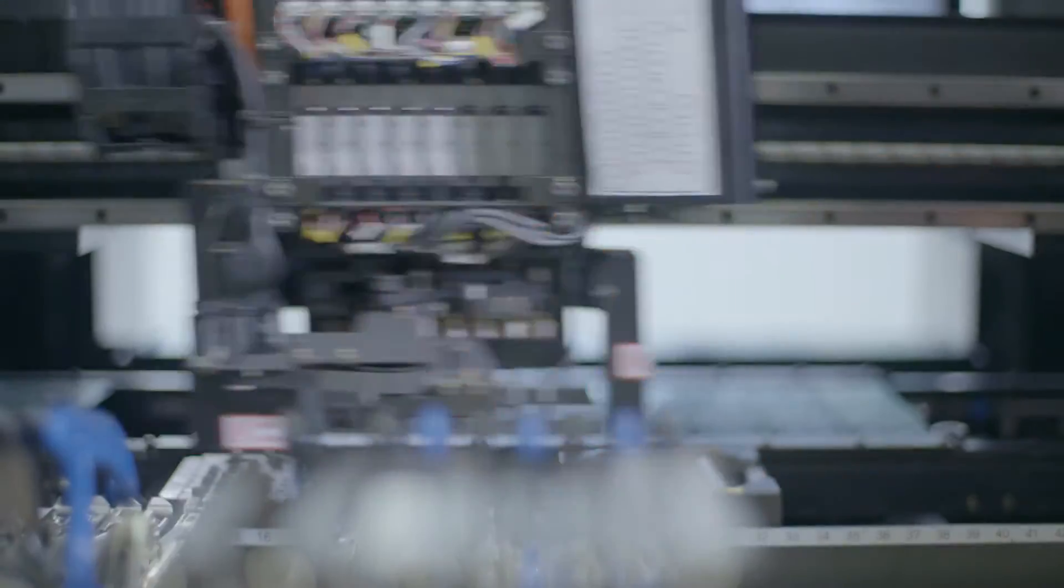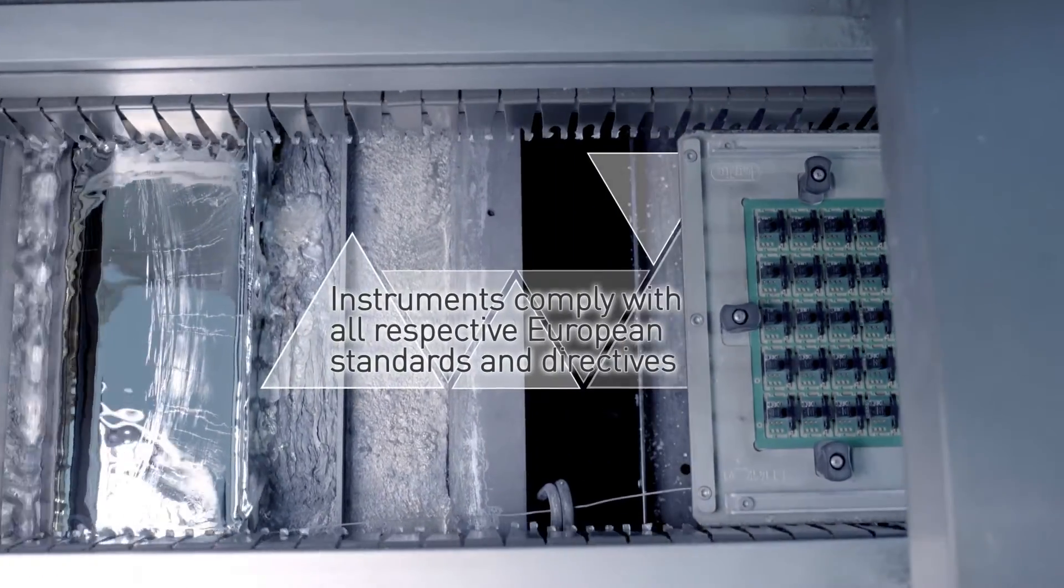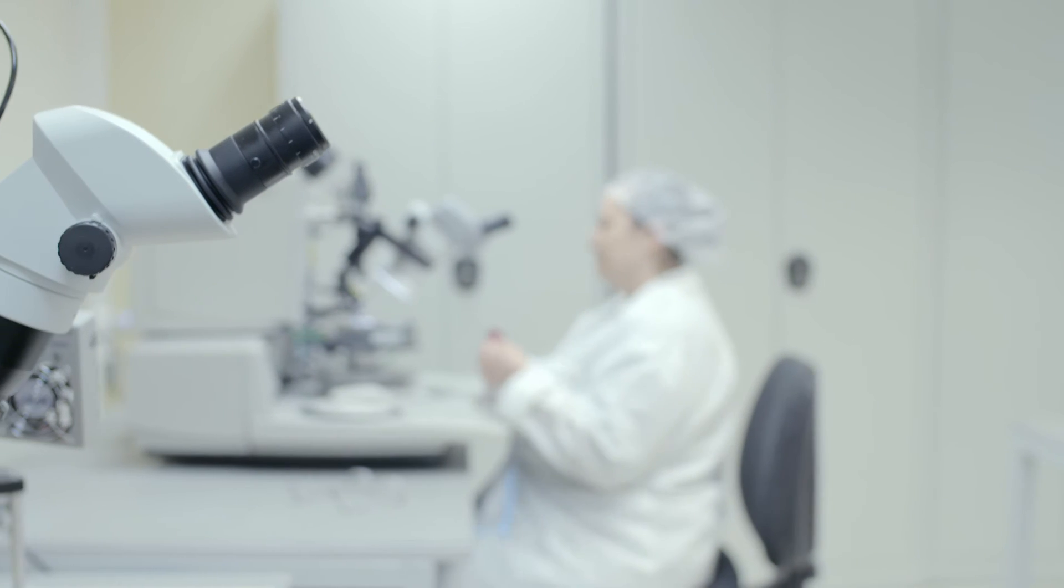The essence of the patented reflectance photometric measurement technology is the four discrete wavelength LEDs with an aging and temperature compensational mechanism.